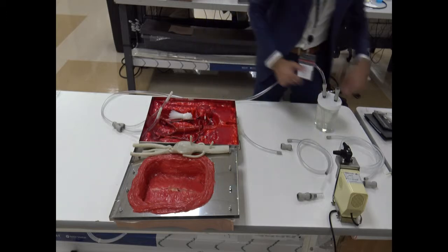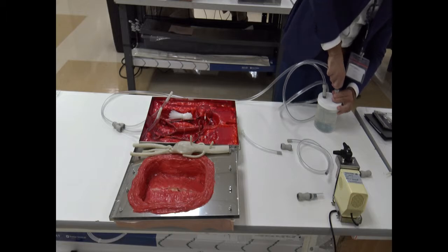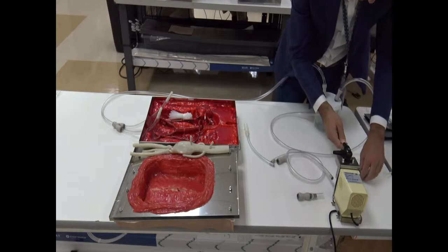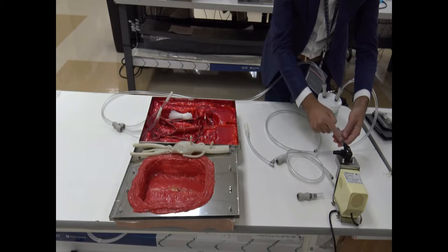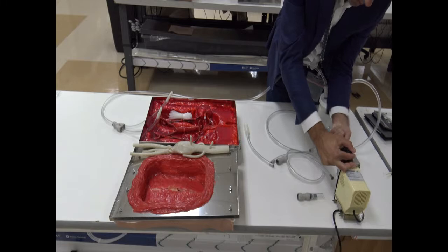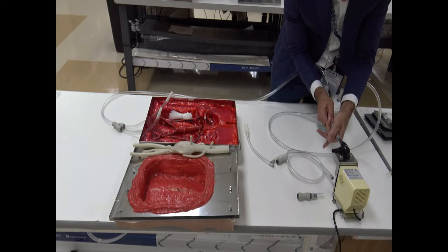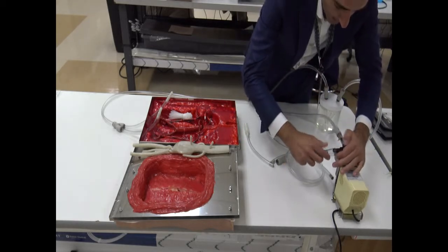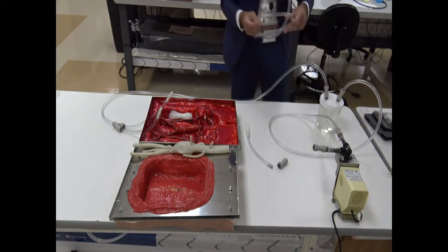Alright, let's keep on going with the reservoir. What we connect is one piece of the reservoir with the in portion of the pump. But in order to connect the pump, we are going to put these adapters on the pump so we can connect the pump over there. Same thing on the output, we connect the output on the adapter, so we are able to connect the connections here.